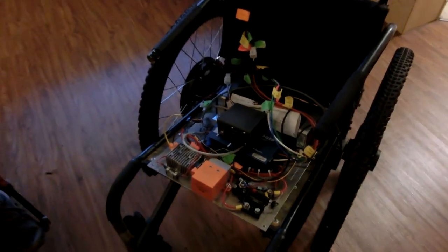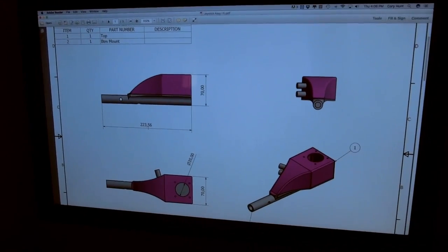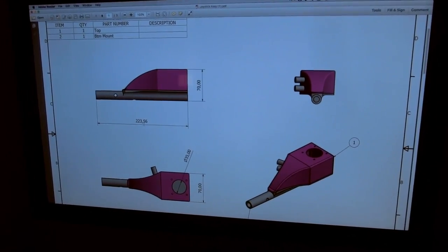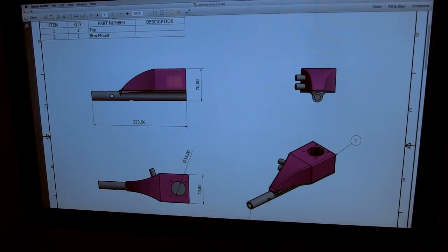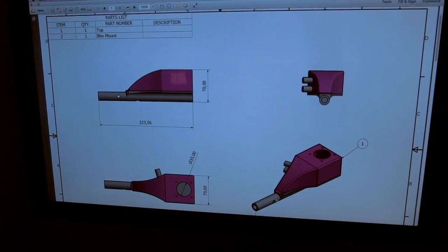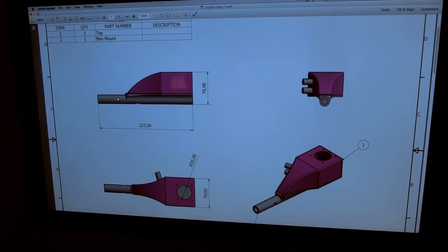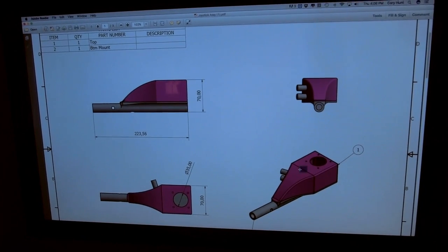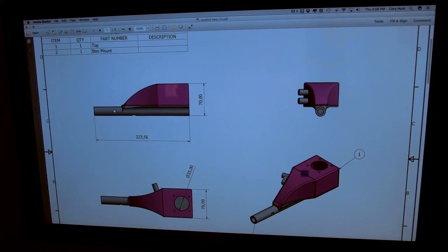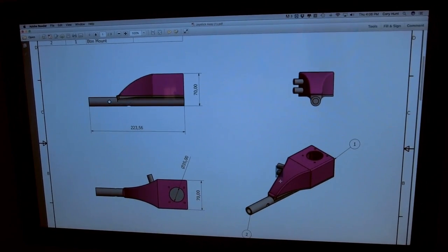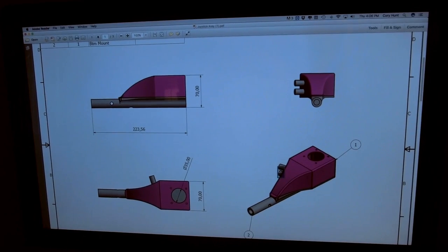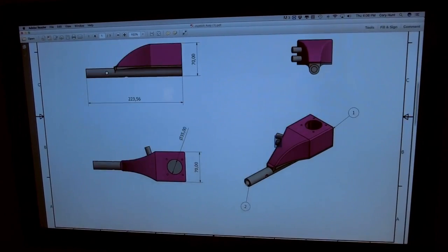I guess I could show you the joystick enclosure that I'm going to 3D print. Oh oh yeah you're getting a 3D printer. I forgot about that. Yeah I'm going to print it and that should help a lot. I'll show you the drawing of it. I'll show you guys the drawing of it. All right so this is the joystick enclosure so this part will stick into the arm rest of the chair. Okay. And then the joystick will be right here. Toggle switches right here. And yeah so I'm gonna 3D print that baby.